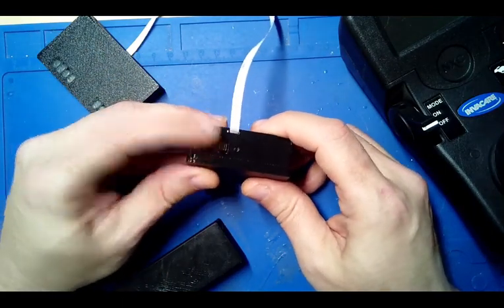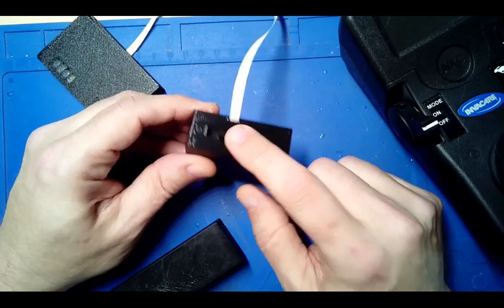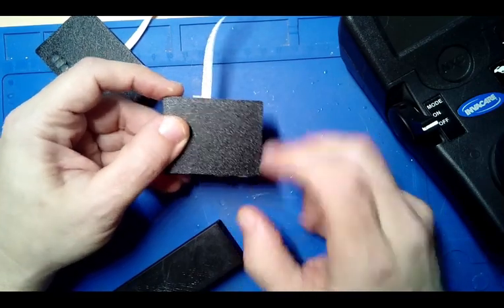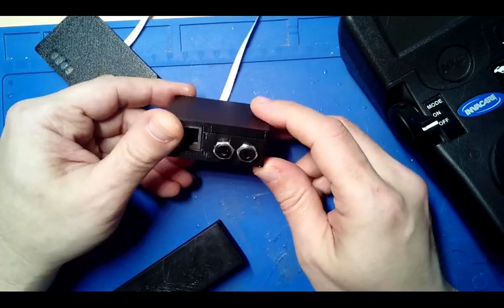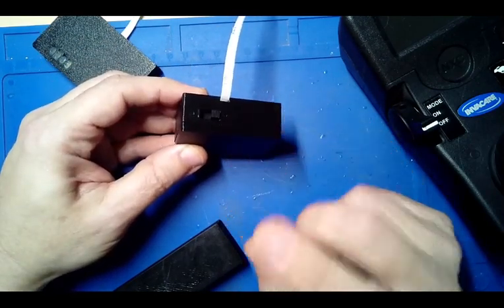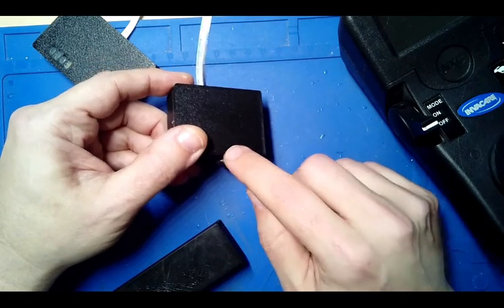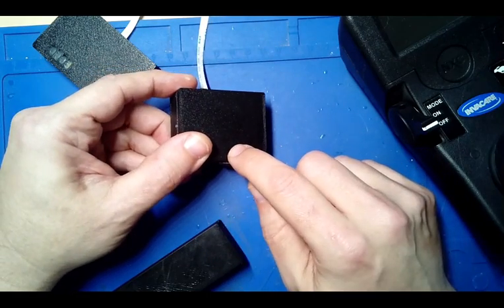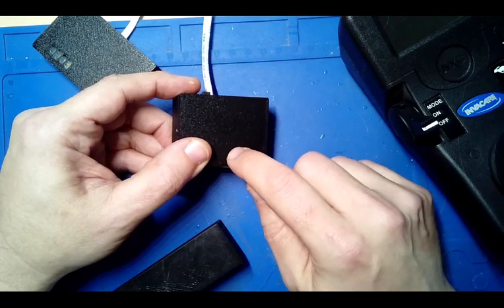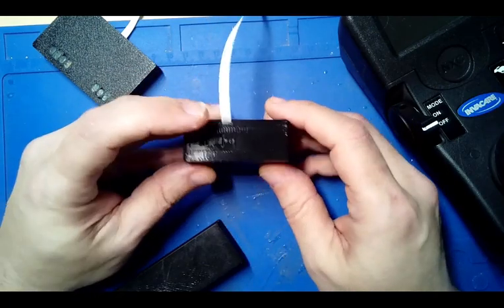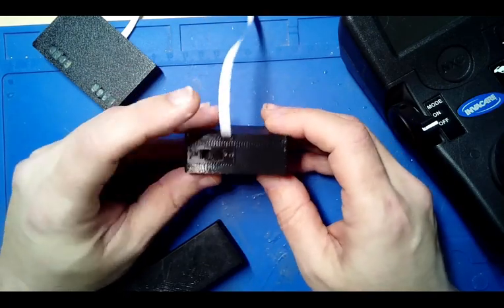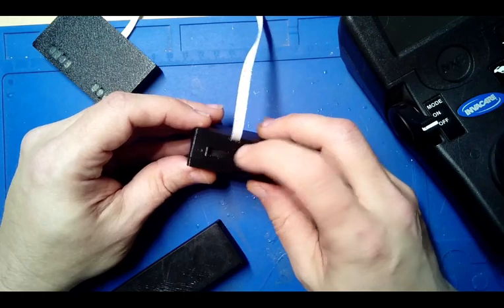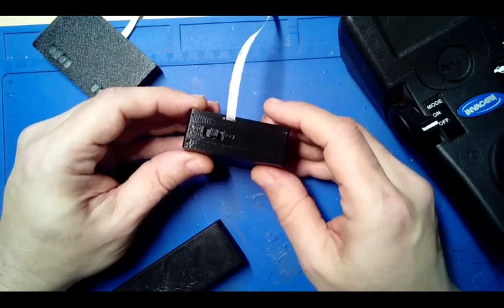And then the other way, which is the switch toward the jack, it will only power it based on the status of this switch. So if your switch is toggled on, it'll be on; off, off. That should make debugging a little bit easier, and you could completely shut down everything if you need to by putting it in the center position.